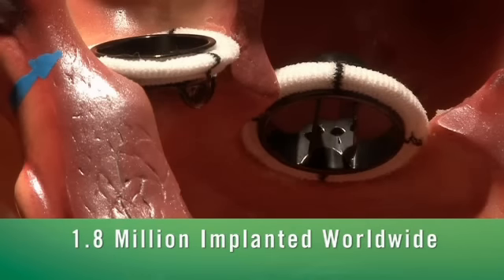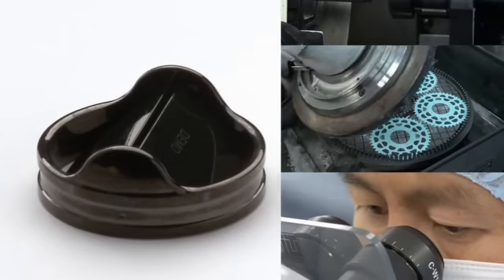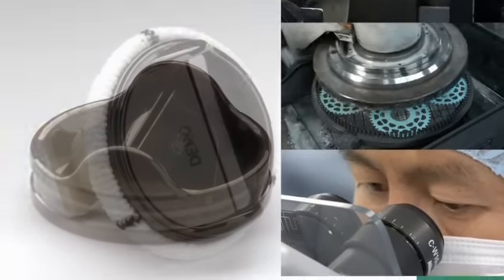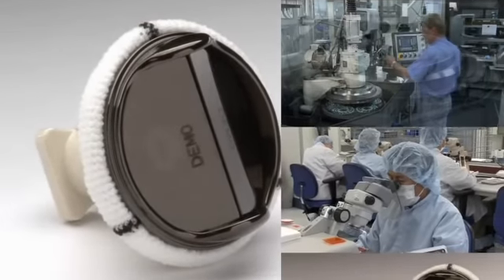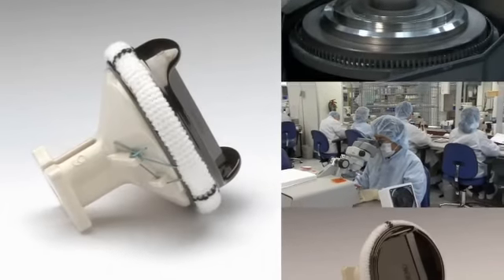We're going on a virtual tour of the St. Jude Medical facility, so you can appreciate the impressive quality assurance processes that are utilized to create these life-saving devices.